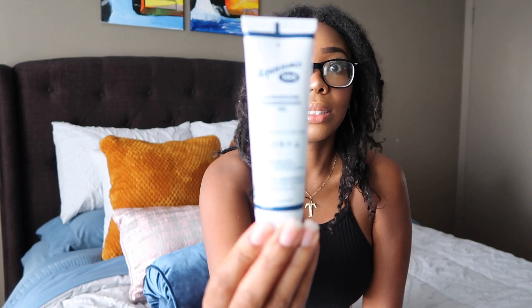If you don't have the ultrasound gel, it's completely fine — you can use aloe vera gel. I got this from Walmart; it should only be about two bucks. And then you're just gonna need something to cover your clothing from the gel. You can use a towel, a wash rag — I'm just gonna use an old shirt. Just use anything that you have.